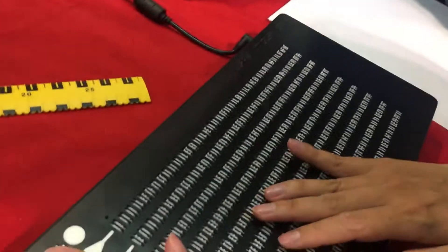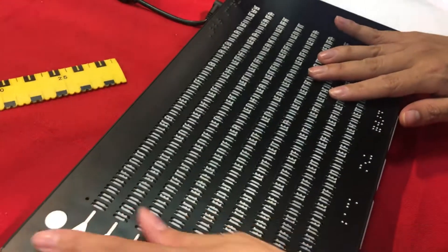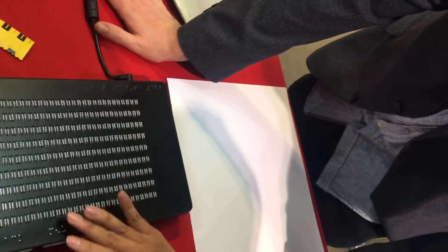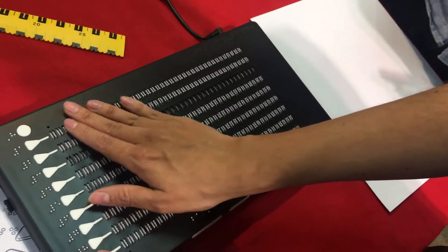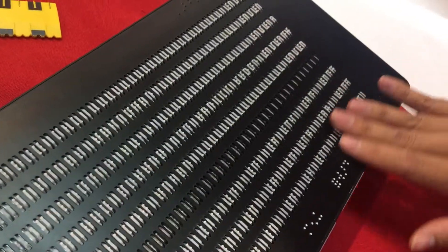Can you feel just to the left of where the braille display is? The triangular buttons. You should feel 9 triangular buttons. If you find the 9th one and press it — so now you've gone to the library menu. It refreshes one line at a time from the top, and this displays all the files that are currently on the USB stick. You can choose a file by pressing the triangular line select button, which is immediately to the left.